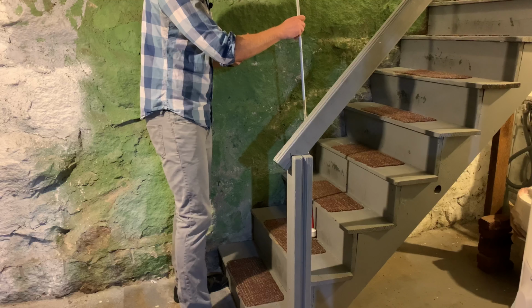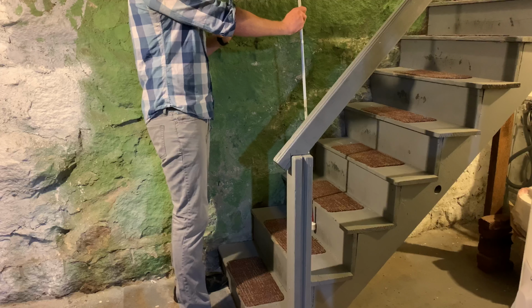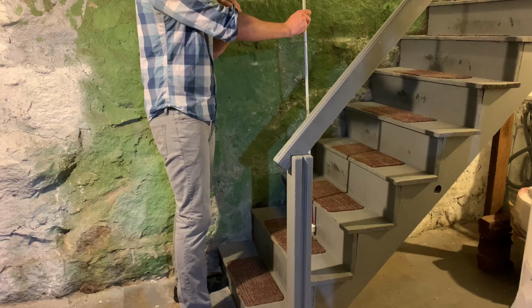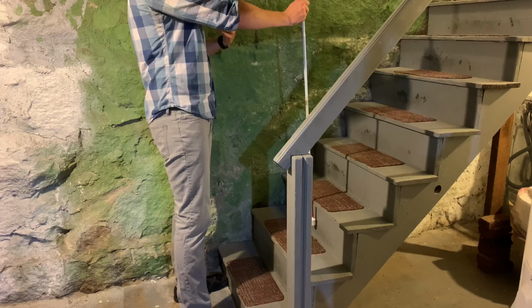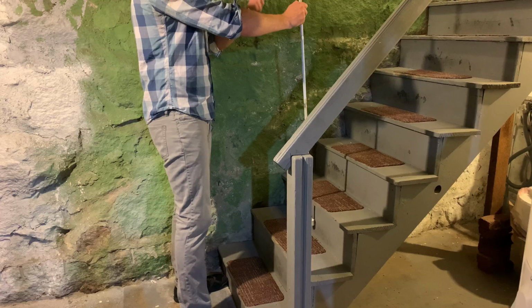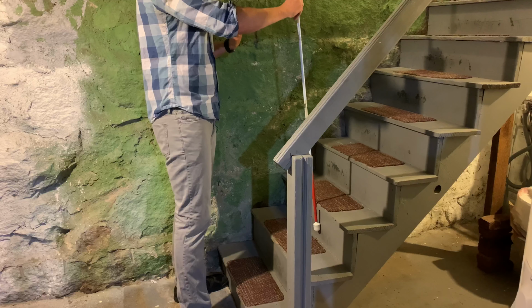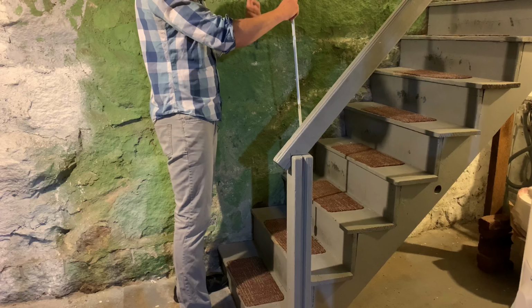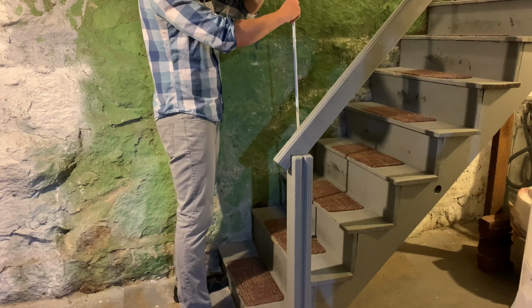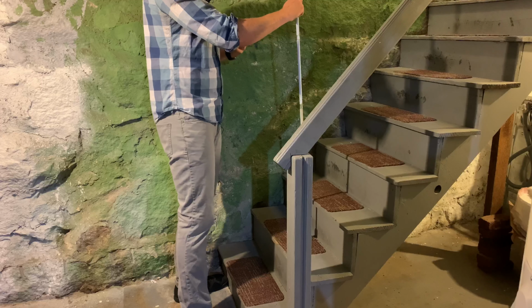Once you've found the third stair, you're going to want to extend your arm straight out in front of you and lock your elbow if you can, or just have as slight a bend as possible. That way your arm is extended out in front of you. The cane is still vertical. And one thing I want to point out is when you're holding the cane, you want to still be doing pencil grip, and you can be holding lower down on the cane. So you don't have to be holding onto the handle. You can actually go down onto the shaft of the cane, which I recommend. It makes it a little bit easier.